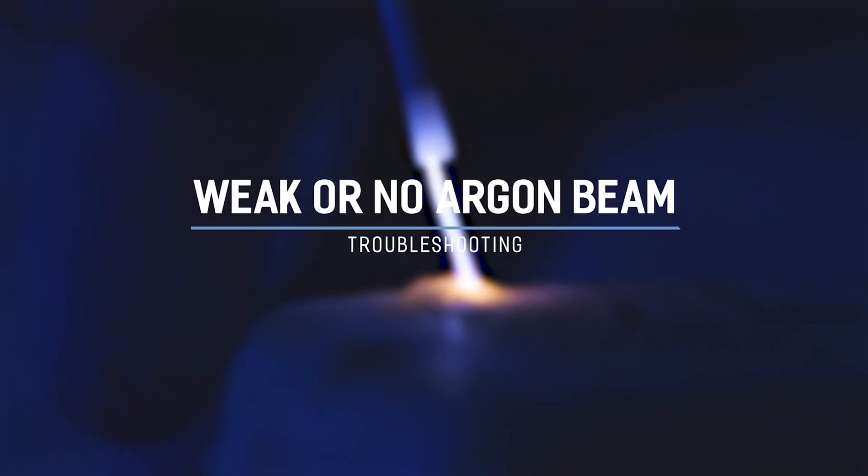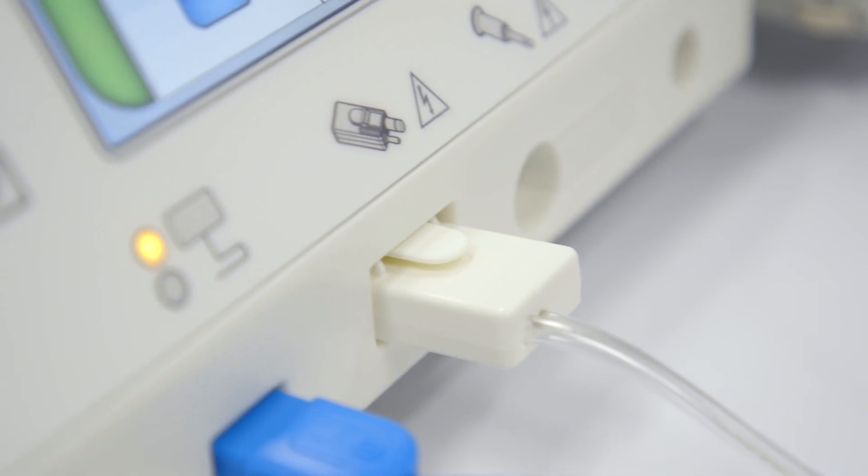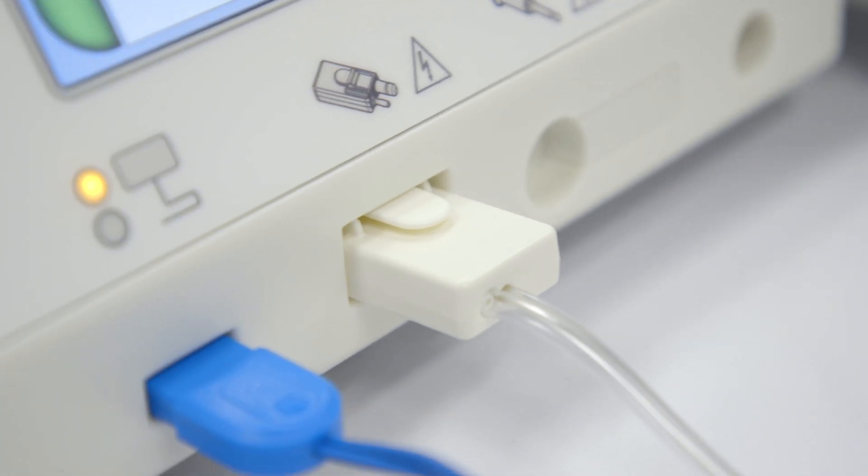Weak or no argon beam. If you are experiencing a weak argon beam or no argon beam, confirm that the ArcConnect is fully connected to the GI-4000.